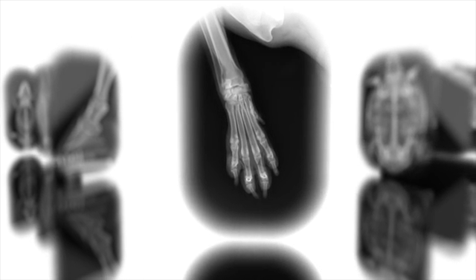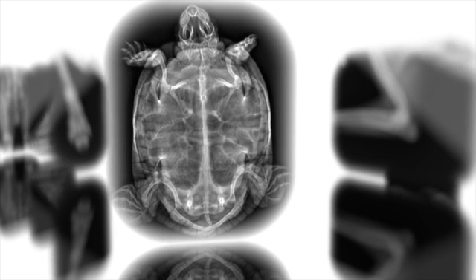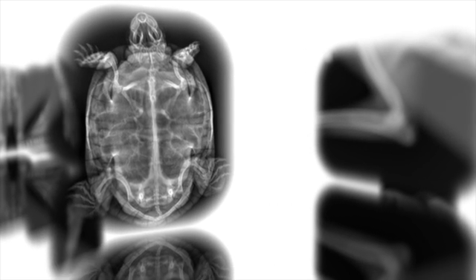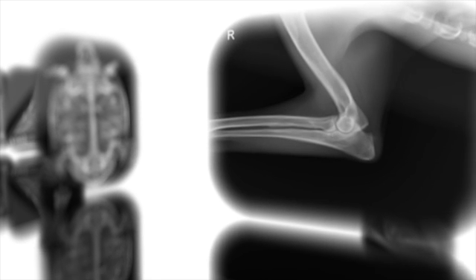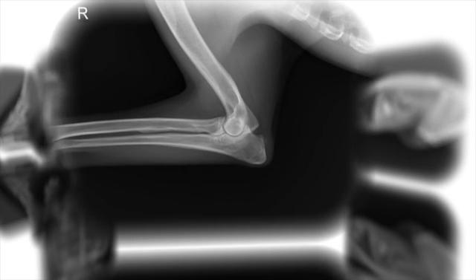X-ray orders can be combined according to your needs and desires. We are convinced that our Examion AQS software will support your optimal workflow. We'd like to take a few minutes to introduce you to our Examion AQS software for veterinary medicine.